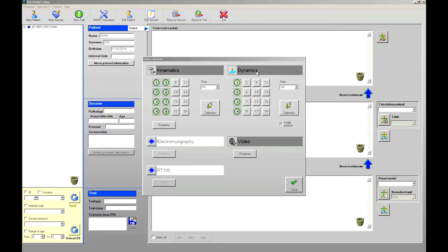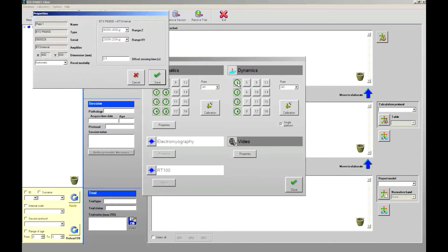To the right there is the box devoted to the force plates or dynamics. The different force plates are also labeled with different IDs. They can also be enabled or disabled by clicking on the corresponding box with the left mouse button — green is for enabled and red is for disabled. By clicking on the force plate ID with the right mouse button, a window will open from where we can set up the force plate ranges on the different components and choose the offset reset modality. By default it is set to automatic, but manual or disable options are also available if required.